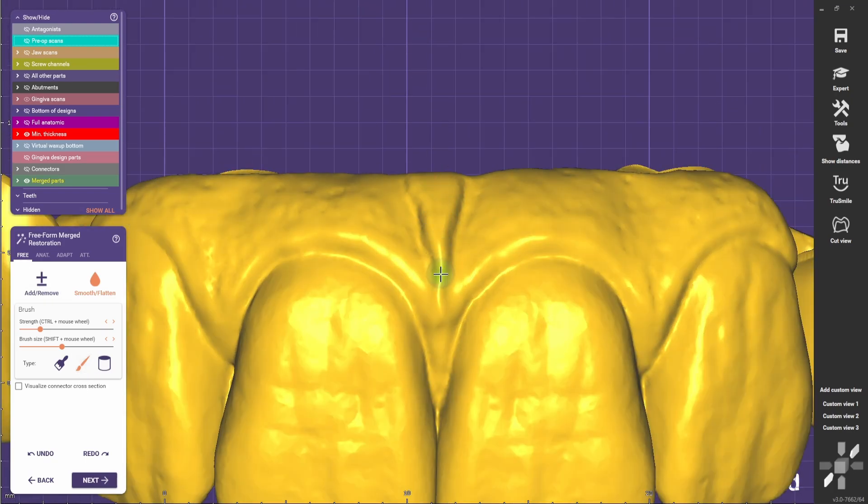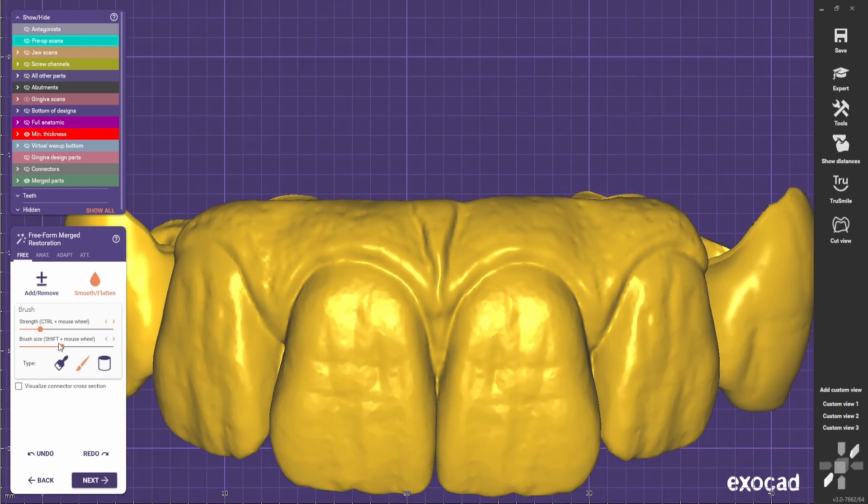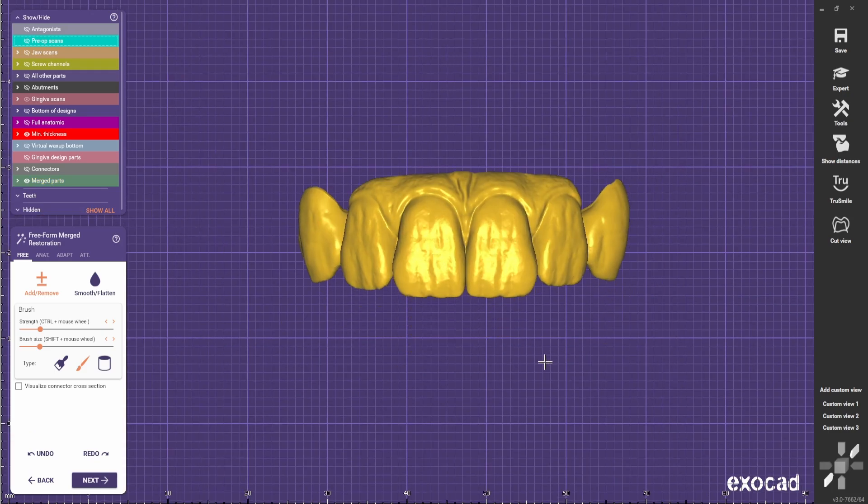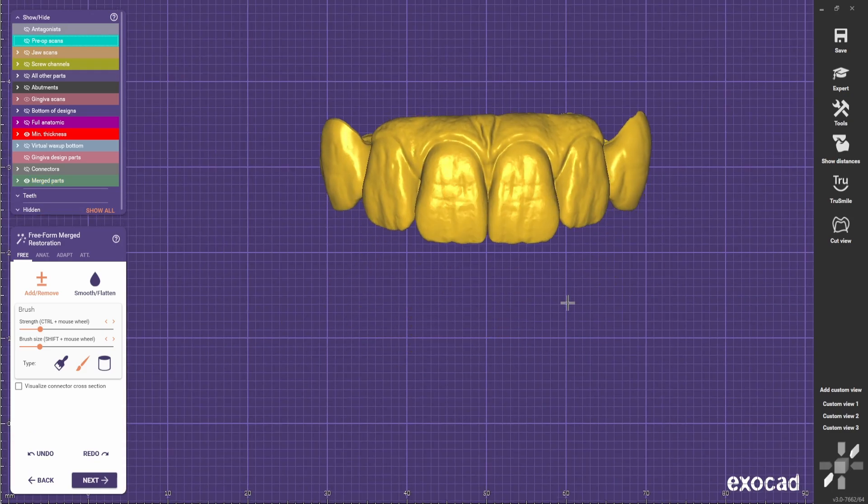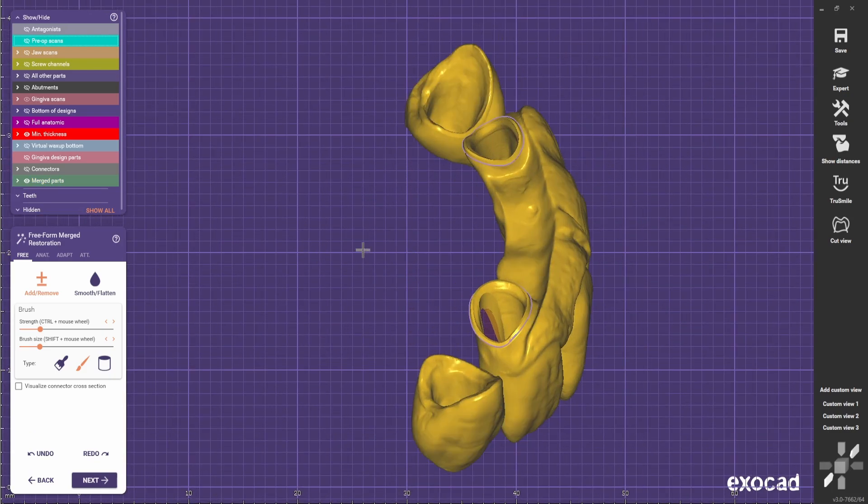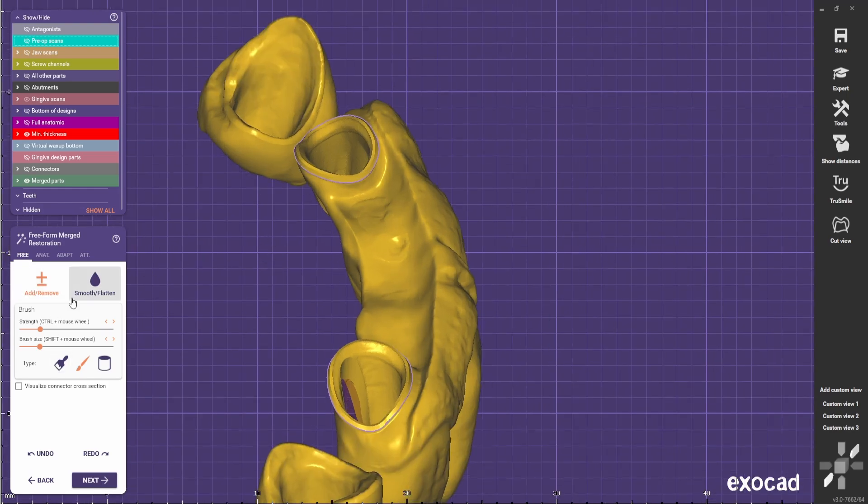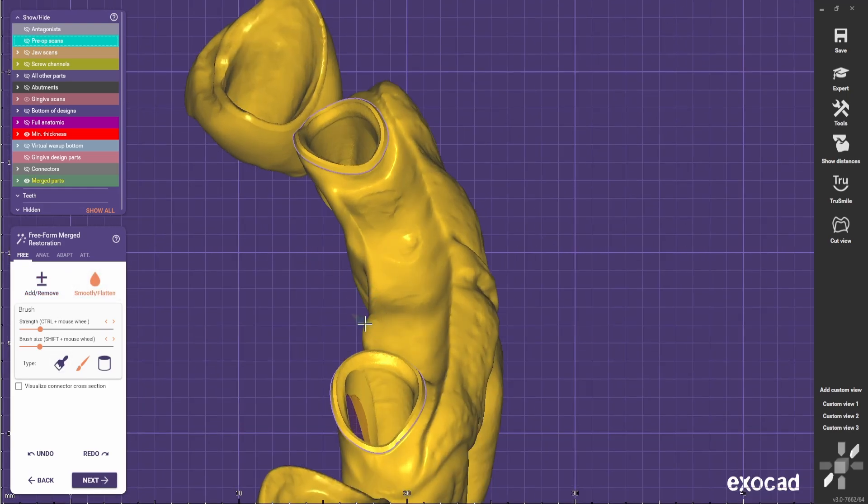Something like this. Usually I like to do them a bit wavy to give them more movement. And now for the bottom part I just try to make it flat.